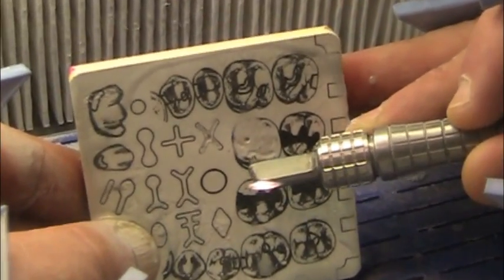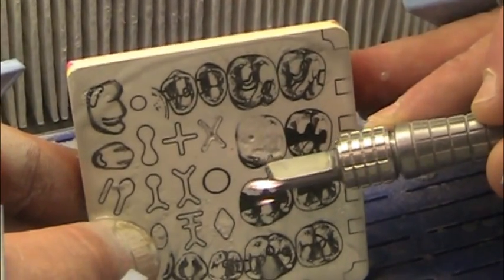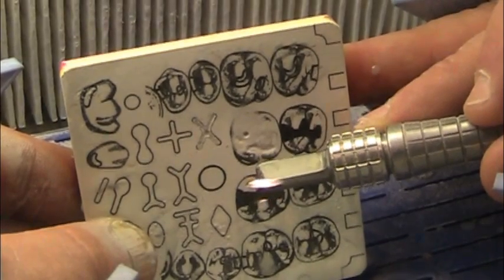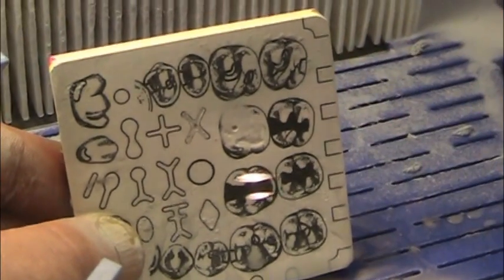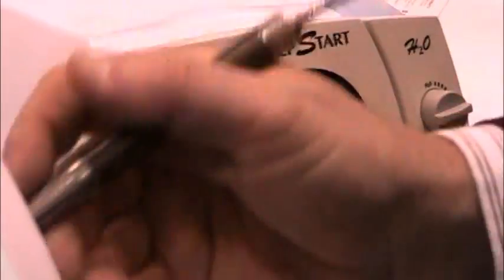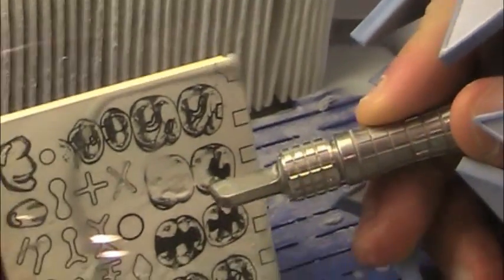And then I would turn it down dramatically, and that's not a tough thing to do. You can turn the powder flow down, and then I can just lightly dust. You see the difference in the cut?